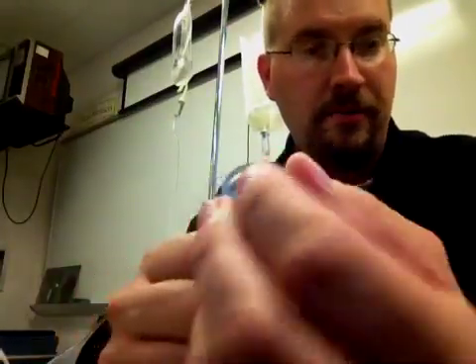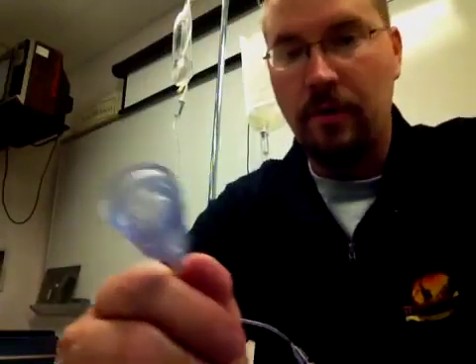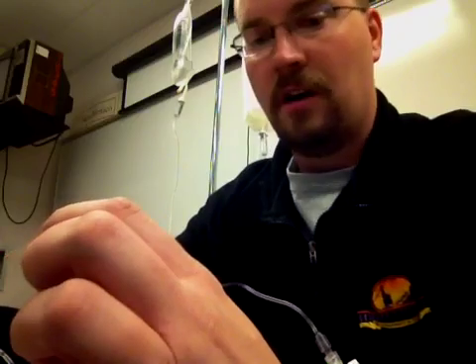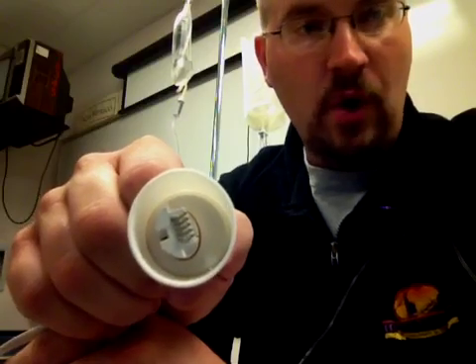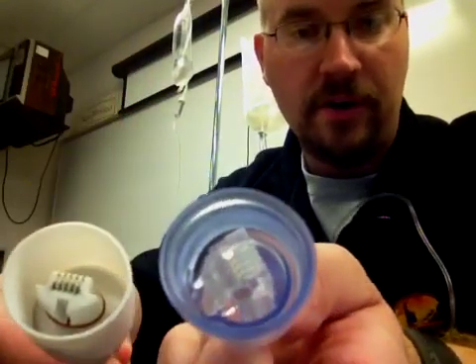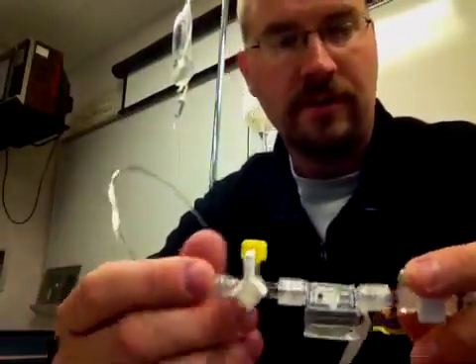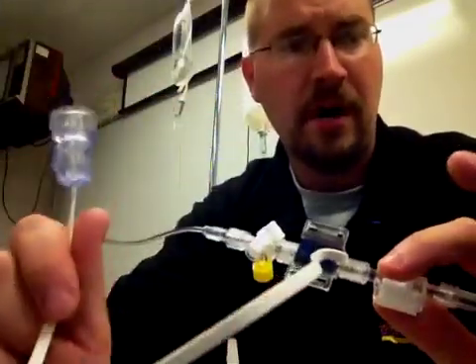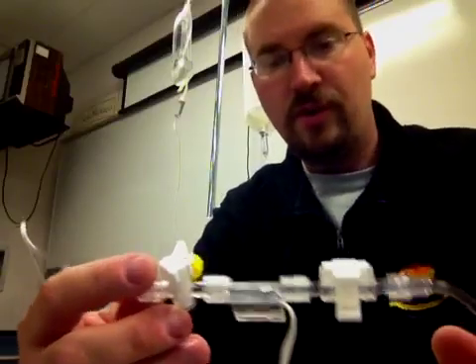That electrical signal then travels through a cable that connects to a monitor. This will actually connect to another cable and that cable will go into a monitor. There are different types of cables. This is a kind of a telephone jack and it has a square shape where this is more of an oval shape. These are probably the two most common shapes you're going to see. So that's really how a transducer works. We're transducing a pressure and turning it into an electrical signal that can be monitored.